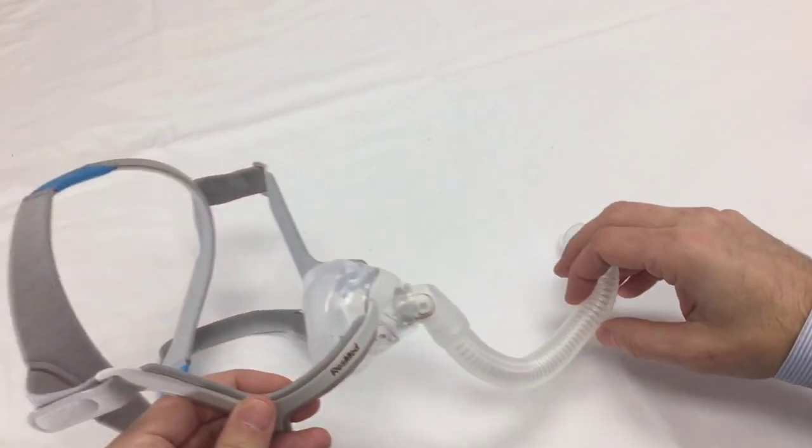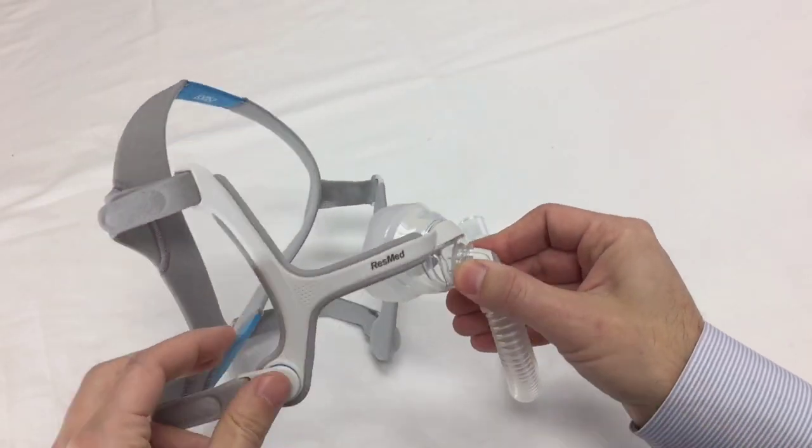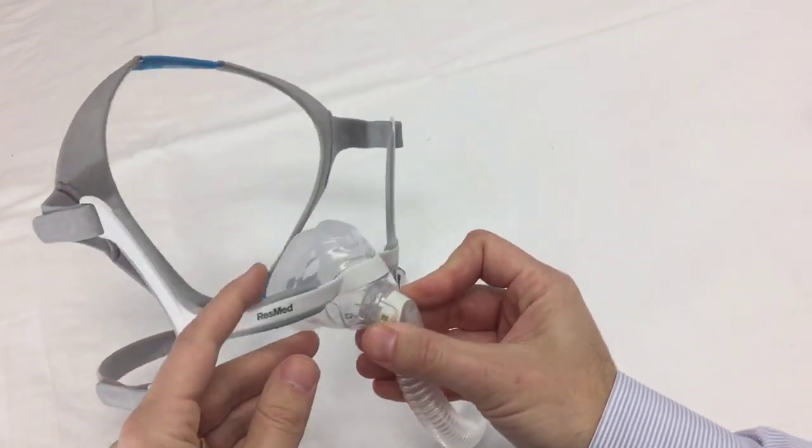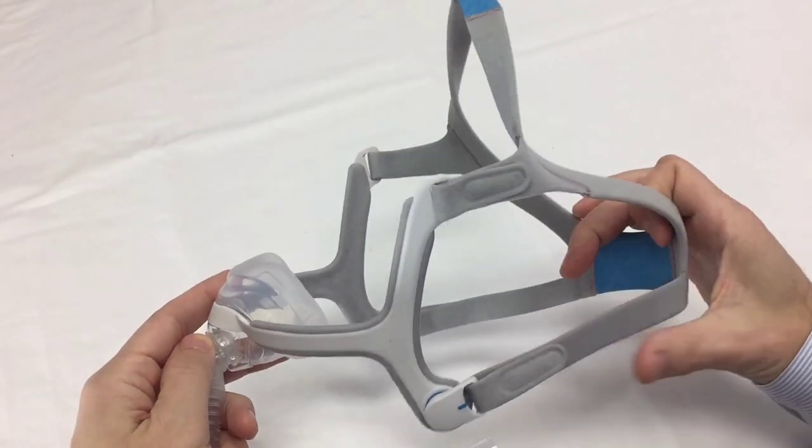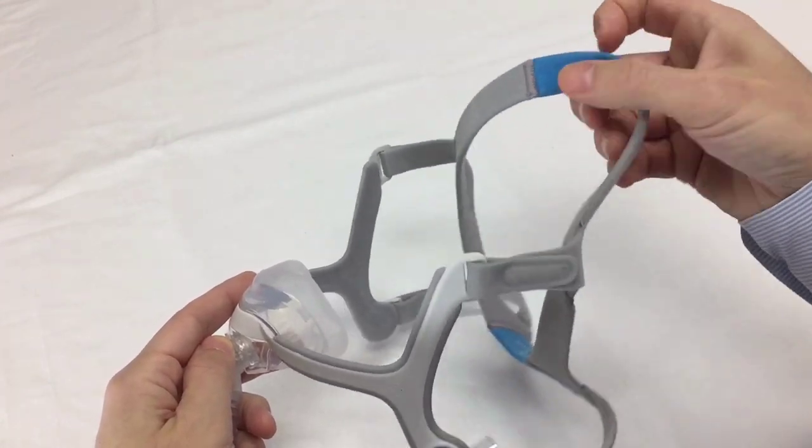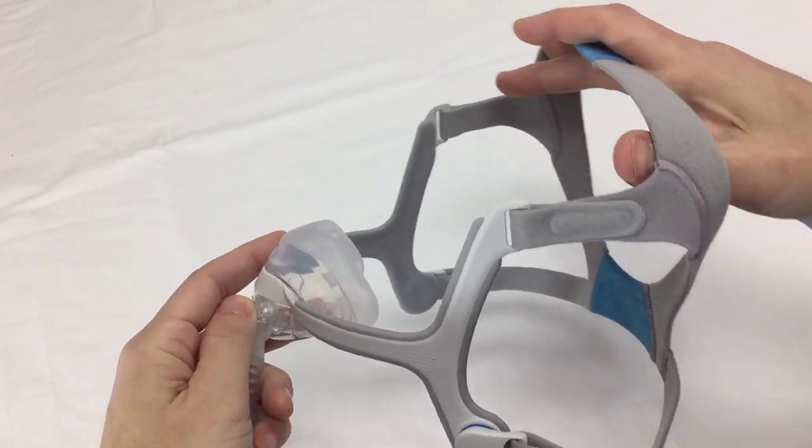And here we have the new AirFit N20. This is the culmination of 25 years of research and design, really a new development in cushion design called the Infinity Seal Cushion. It's ResMed's most adaptive cushion ever, and we'll take a look at that in a little bit.